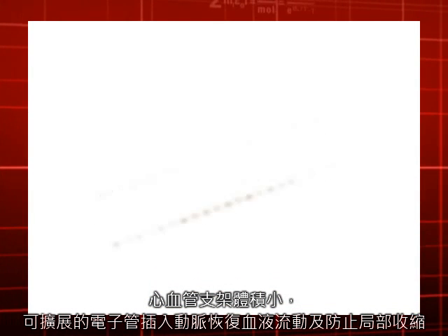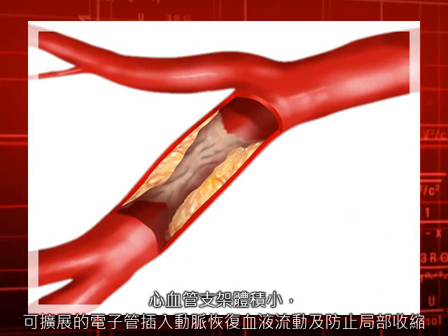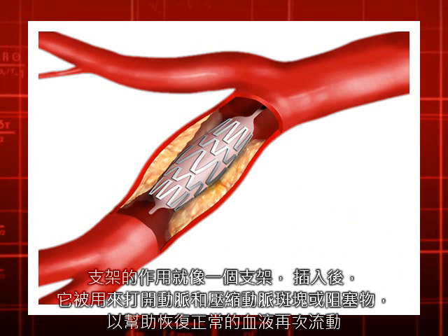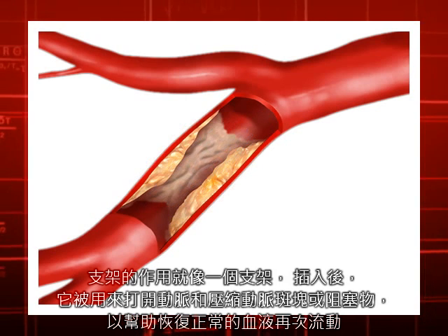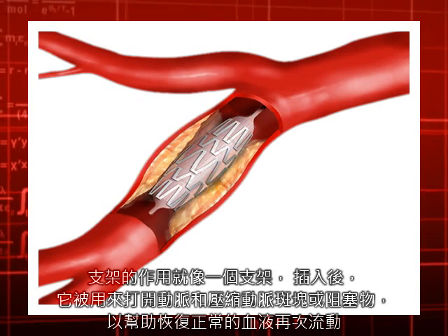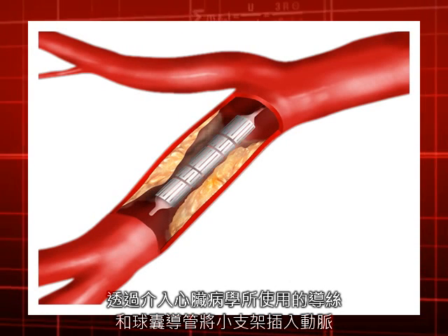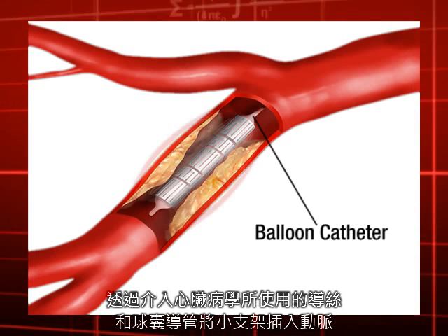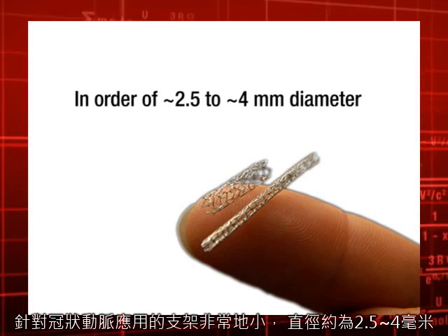Cardiovascular stents are small, expandable tubes that are inserted into arteries to restore blood flow and prevent localized constriction. The stent acts like a scaffold after it's inserted, and it's used to hold the artery open and compress the plaque or blockage to help restore normal blood flow. These small stents are inserted into the arteries by an interventional cardiologist using a guide wire and a balloon catheter. Stents are quite small, on the order of 2.5 to 4 millimeters in diameter for coronary stent applications.